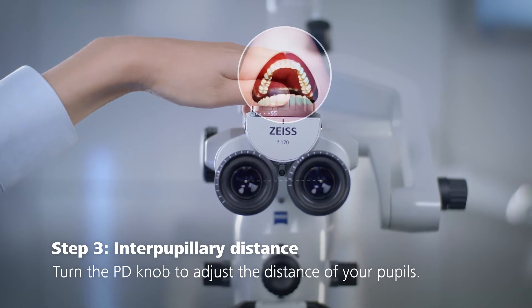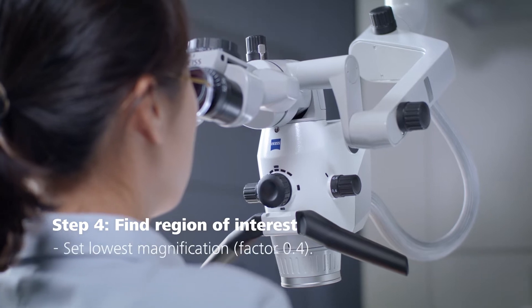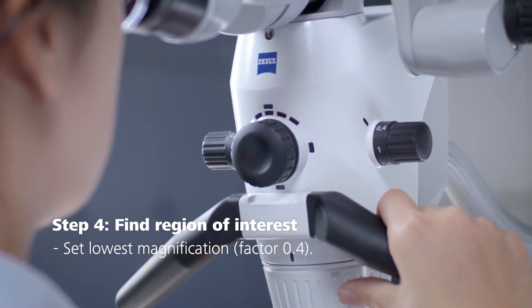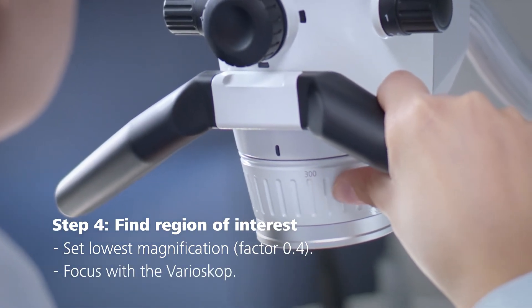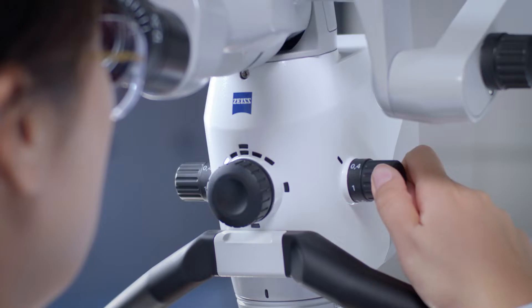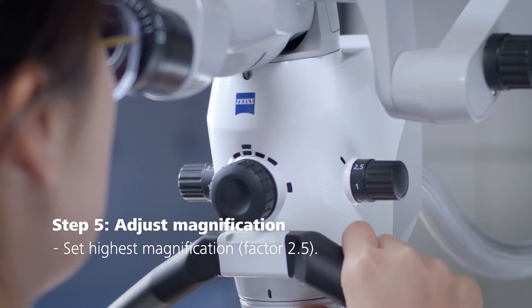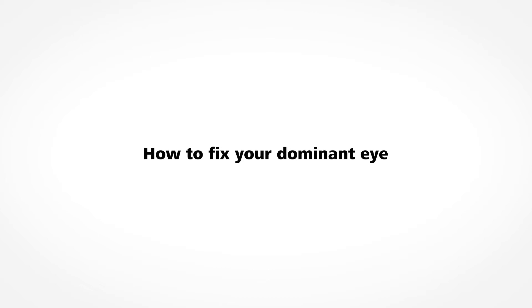Adjust the eyepieces from the widest distance apart to a smaller distance. To reach parfocality, set the dental microscope to the lowest magnification — select magnification factor 0.4 on the magnification changer — and use the varioscope to focus the image until it is sharp in the eyepieces. Then set the highest magnification by selecting factor 2.5 on the magnification changer and focus the image.